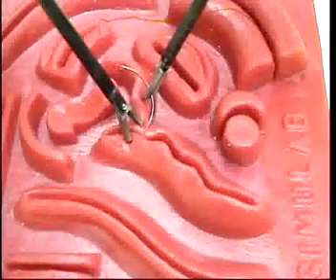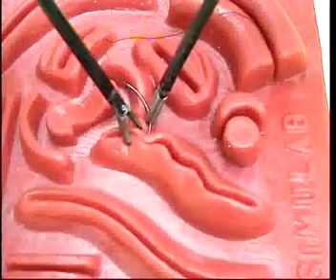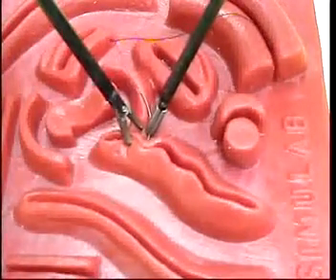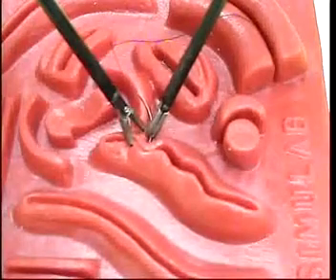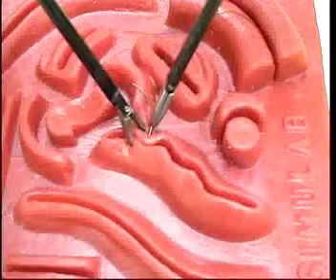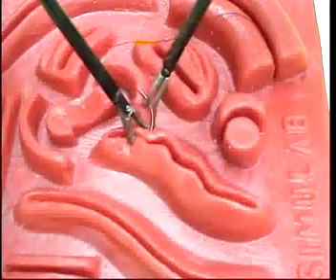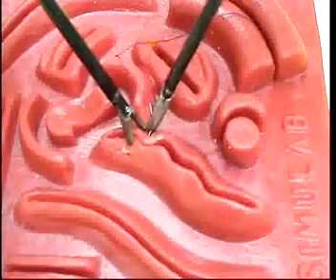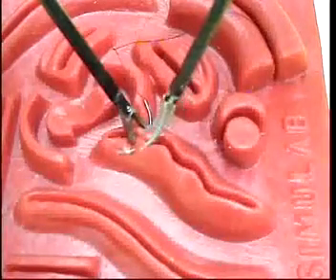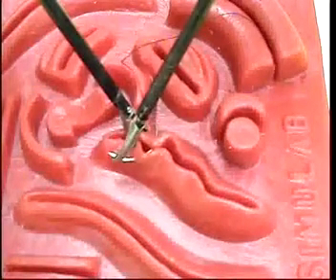Tele-operated robotic surgical systems have been commercially developed and shown to be effective, yet their adoption into standard practice has been limited at present for reasons which may include their size, complexity, and cost. In the Department of Mechanical Engineering at the University of Hawaii, we have developed a basic tele-operated robotic system for minimally invasive surgery which is simple, compact, and easy to set up and use.